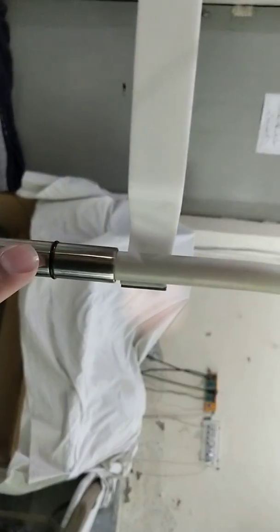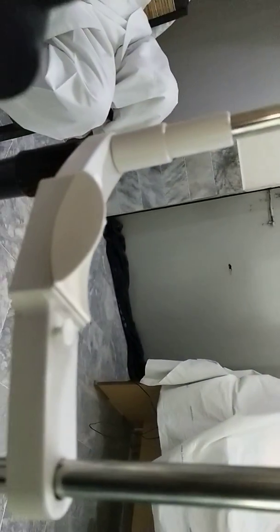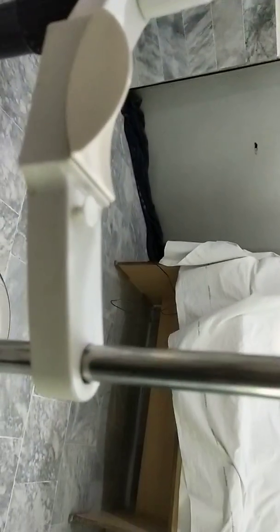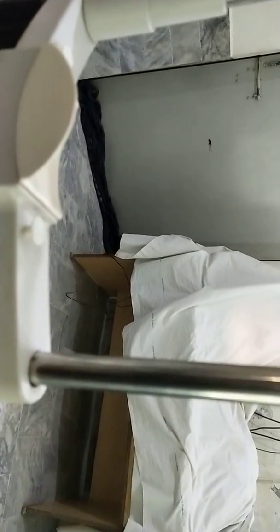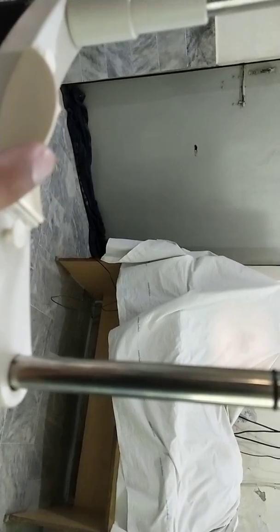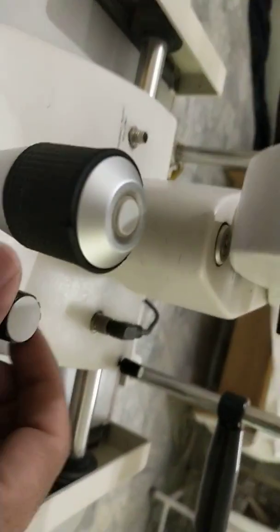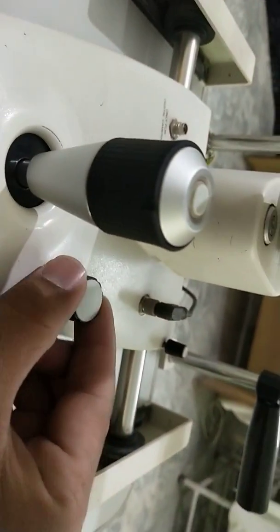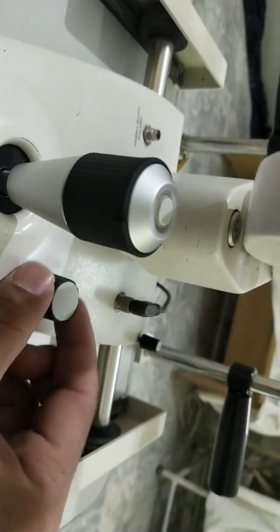Now here you can see the mark. The eye should be aligned with this mark and the patient chin should be aligned here. There will be patient chin, forehead and eye. And this is the illumination. If you want to increase the illumination you should move it.